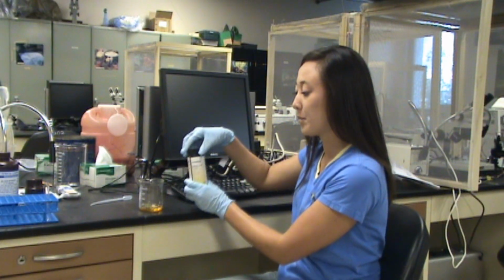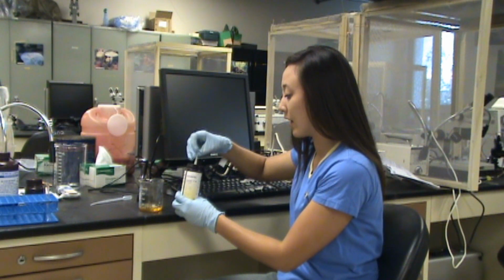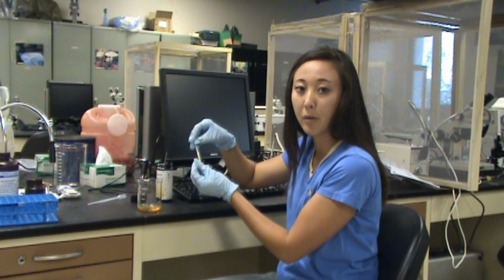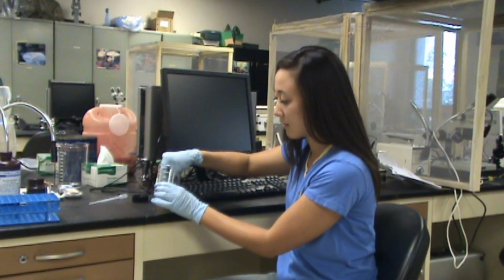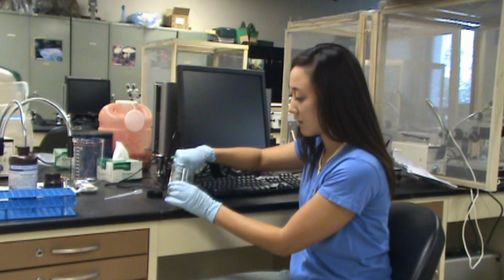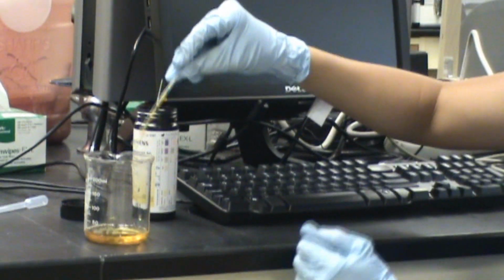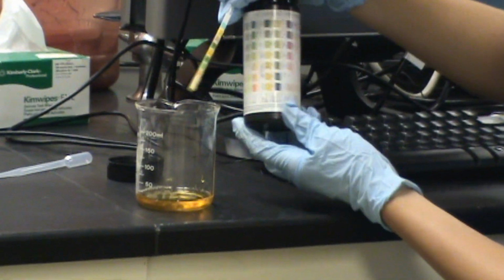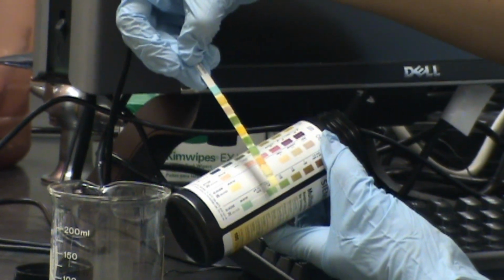Okay, so once you've collected your sample of urine, you'll take one of the chem strips, which actually measures the different components of urine. So just take one chem strip out. And then there's different little pads on here that will tell you a positive or negative reading. So what you're going to do is just dip it completely in urine. Drag the chem strip against the beaker so you take off the excess urine. And then you're going to look at the different components in it. So what you're going to do is compare it against the different components that are in the urine.